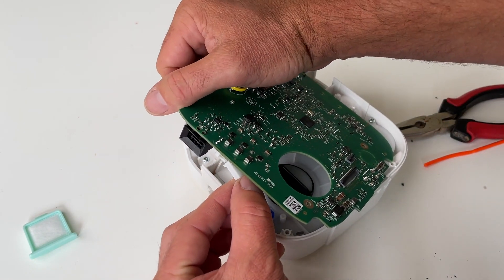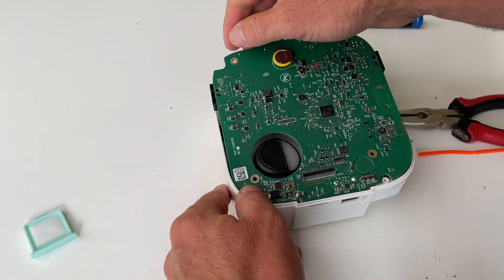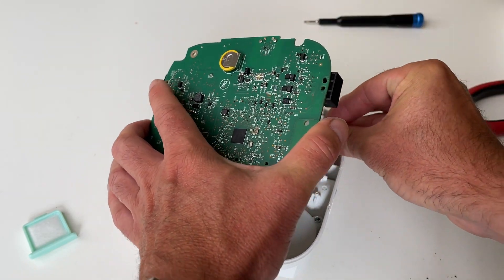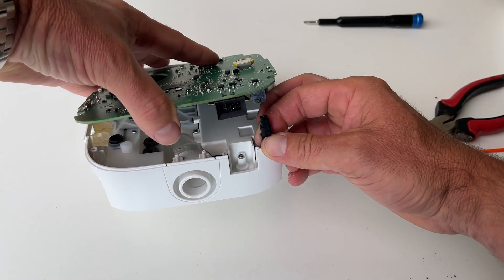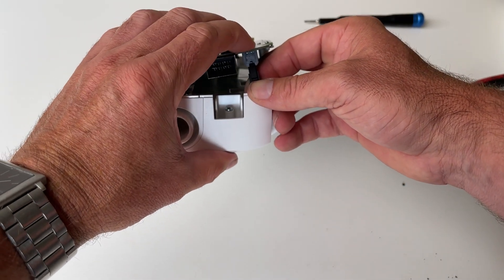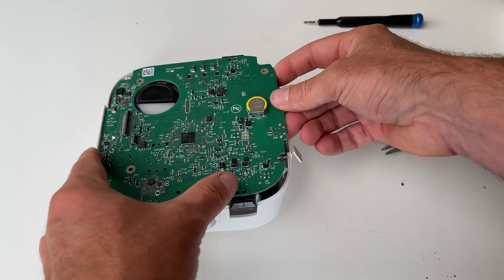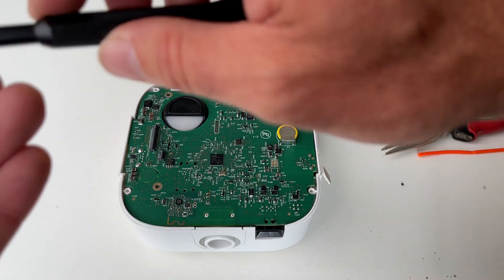Let's see how that goes on here. Do that one first and then this one here — it's a little bit fiddly, like I said, but you can sort of pull it up a little bit, get your thumb and finger just underneath it there, and then just sort of push down. You'll see it just clip on over the top there. Fit it down, and now we're just going to put the little screws back in to hold down the PCB board.